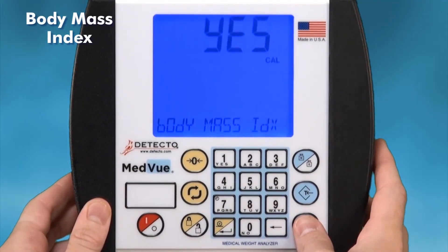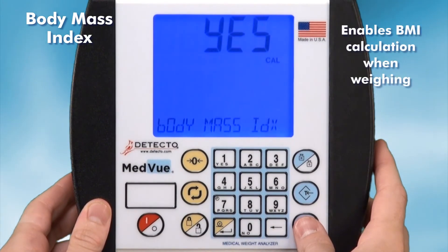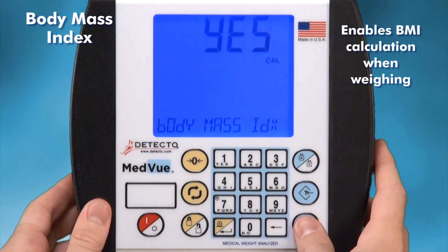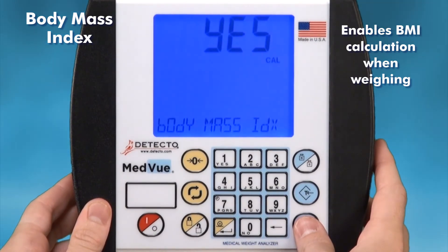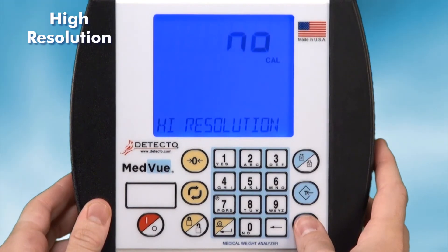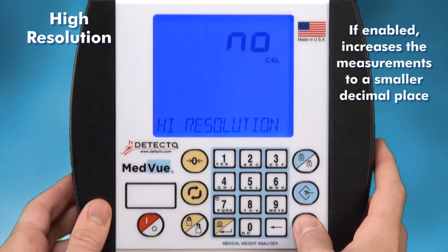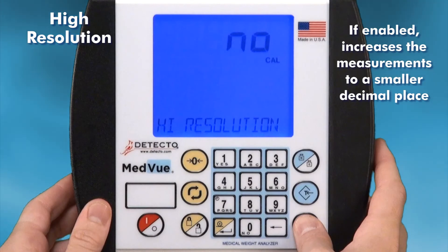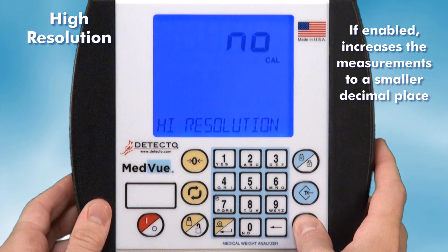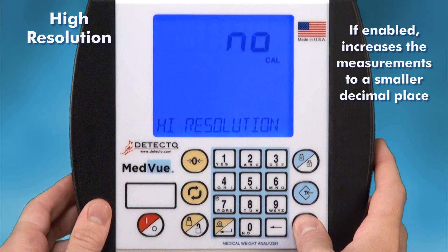Body mass index is the last parameter and is toggled either on or off. If enabled, the MedVue will perform BMI calculations when weighing; if not, it will perform only basic weight calculations. High resolution mode will change the display to show weight at a higher resolution — for example, if the MedVue is configured for 400 by 0.2 lb, then in high res mode it would display 400 lb by 0.02 lb.